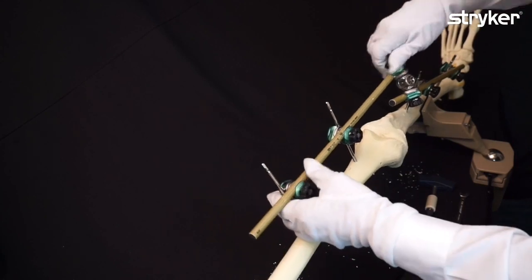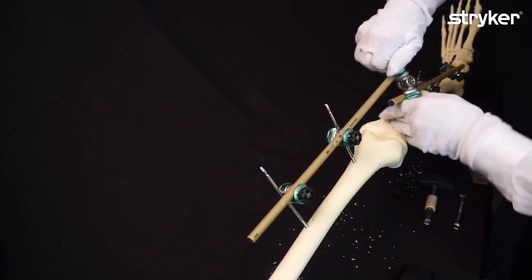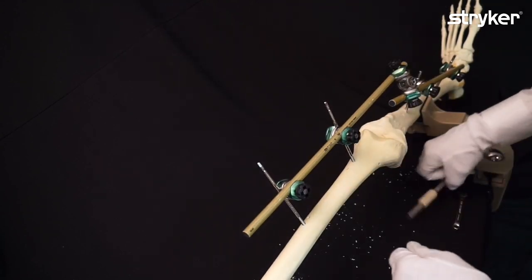Still adjust and then final tighten it down like this, final tightening.